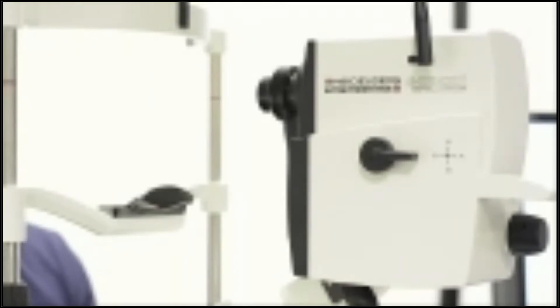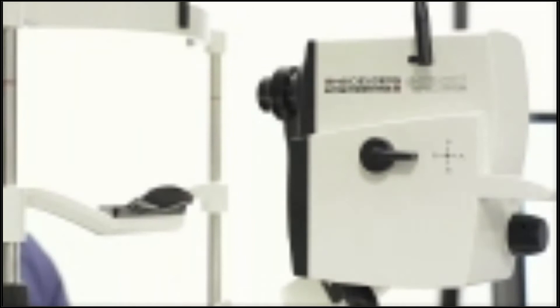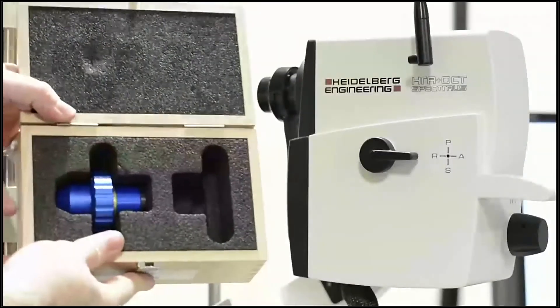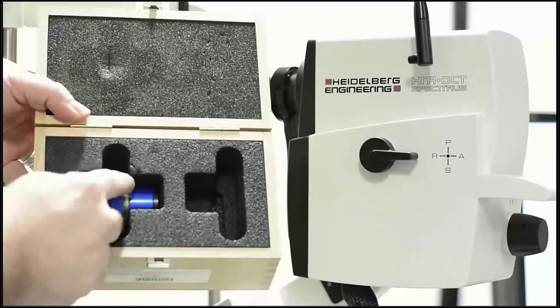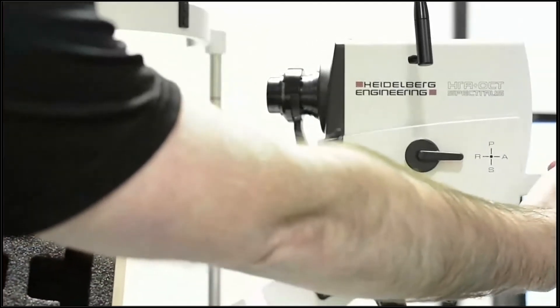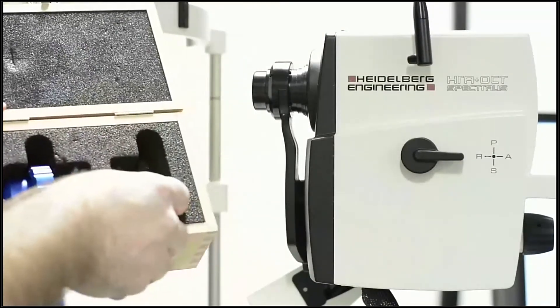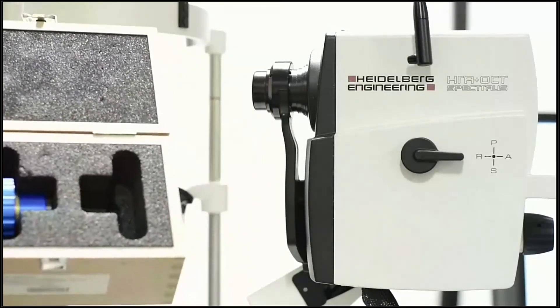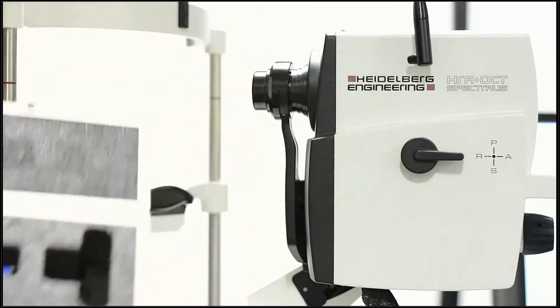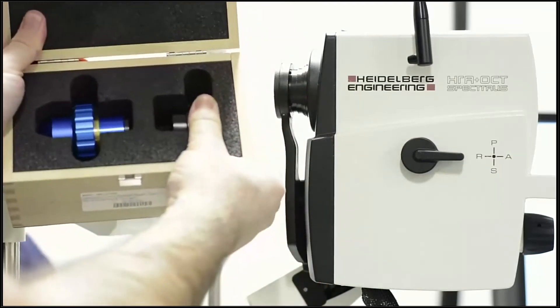I'm going to show you how to fit the anterior segment lens. When you get the ASM lens with the Spectralis, it comes in a box with two slots: the actual ASM lens — this blue colored lens — and an empty space designed for you to place your 30-degree lens. This keeps it safe in a high-throughput clinic, because you don't want a lens rolling off the table. The whole process should start with putting the 30-degree lens in the box.